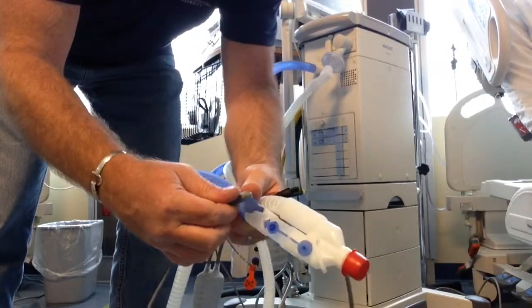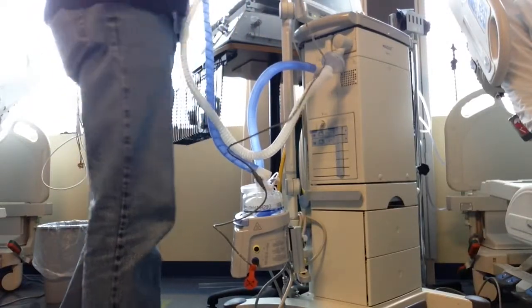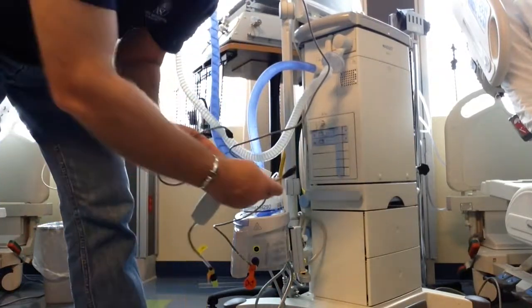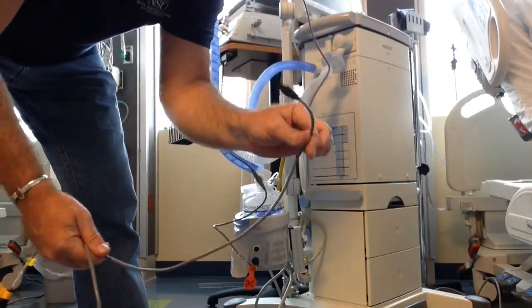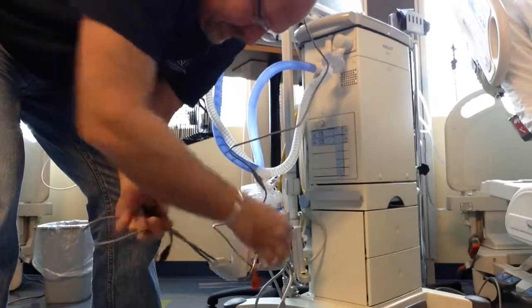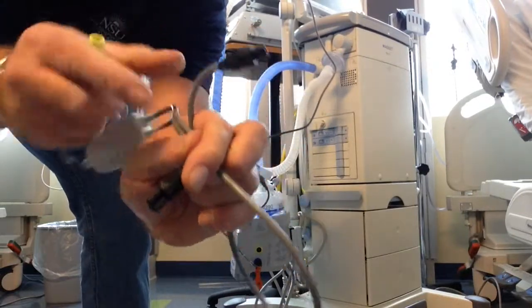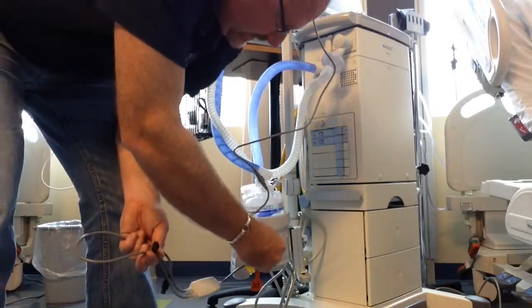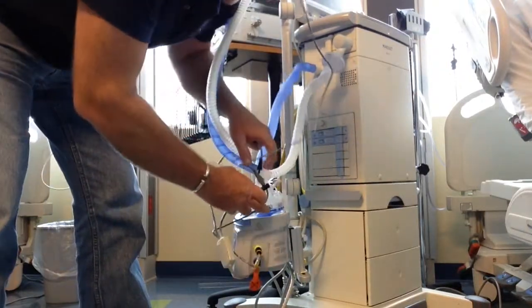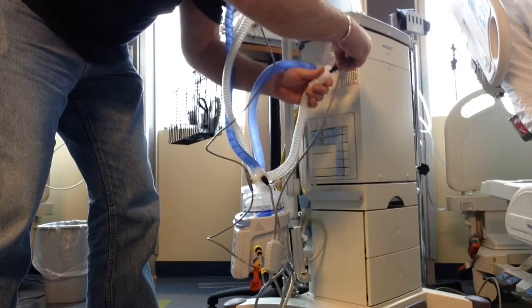Open the airway probe up and insert it — there it is. As mentioned, how does it actually heat the wires? There are wires in the circuit, and you use your pigtails. The short one goes closest to the heater; the long one goes furthest from the heater. Yellow goes to yellow. The inspiratory side has three prongs — it's clovered; the exhalation side only has two prongs and is also longer. So twist and put in — inspiratory, the clovers match up, put it in. Expiratory is two-prong — connect the two-prong pigtail.